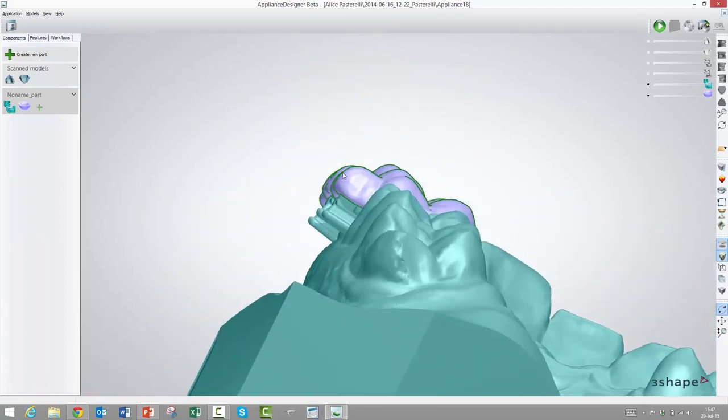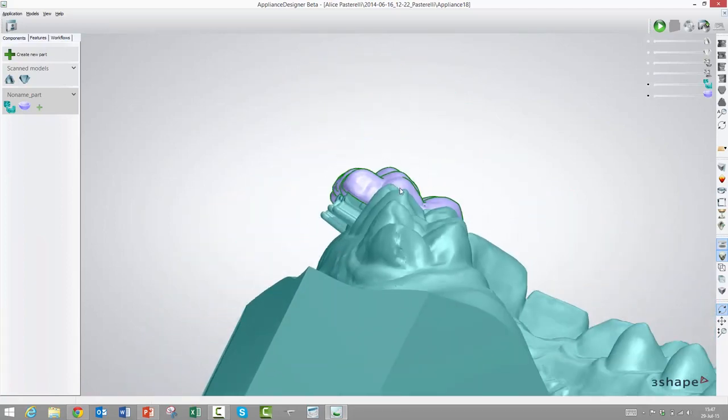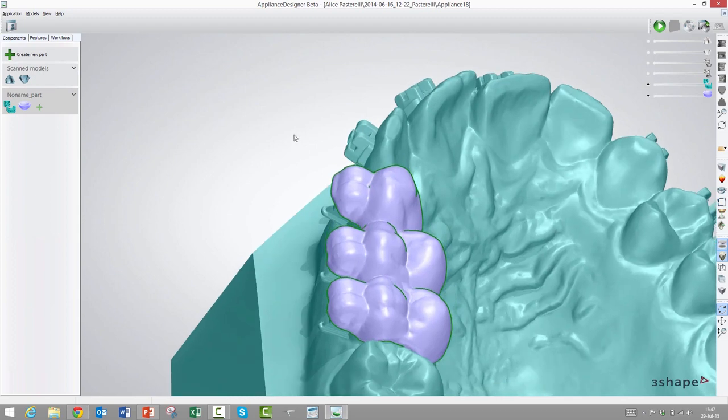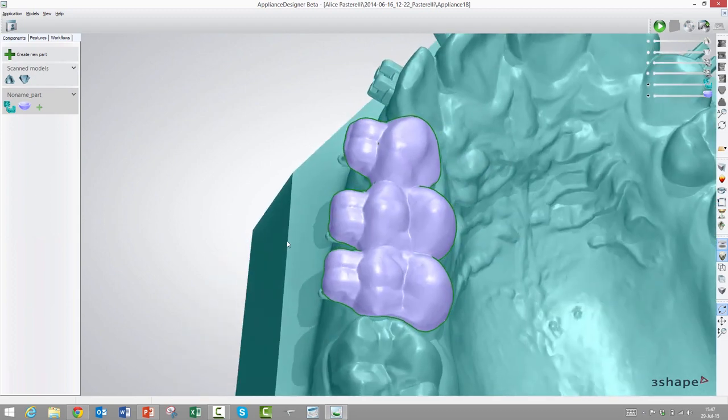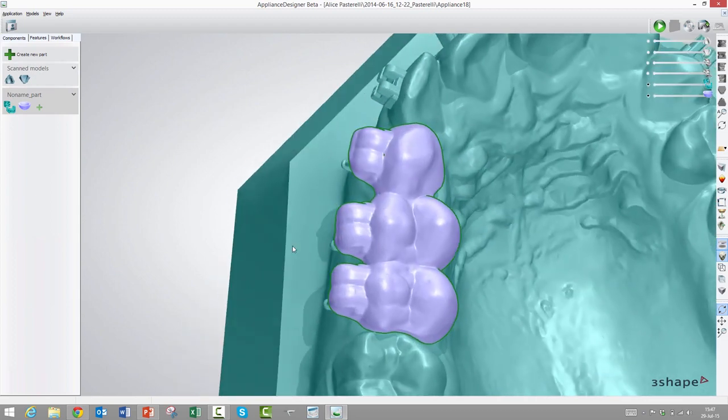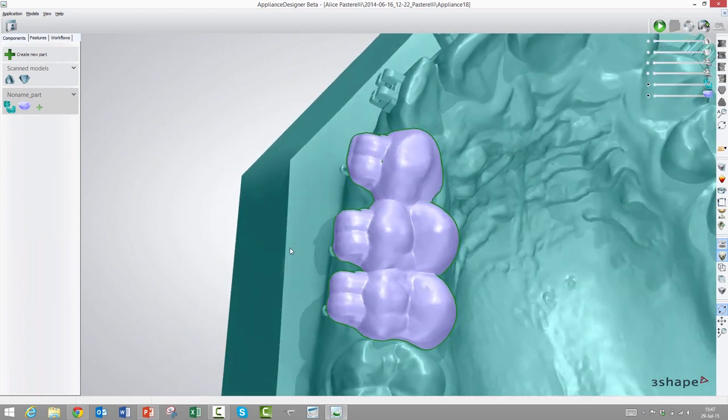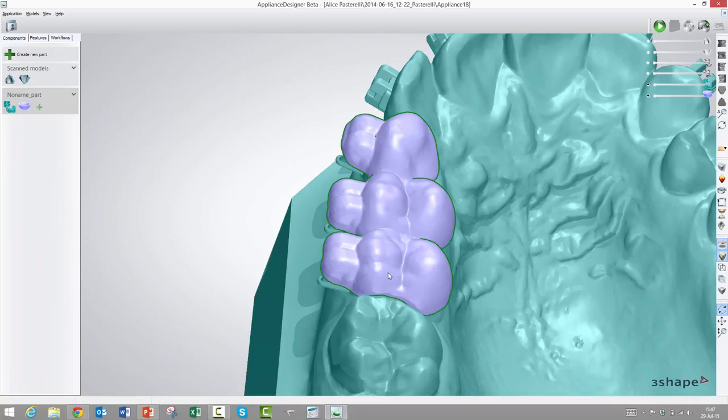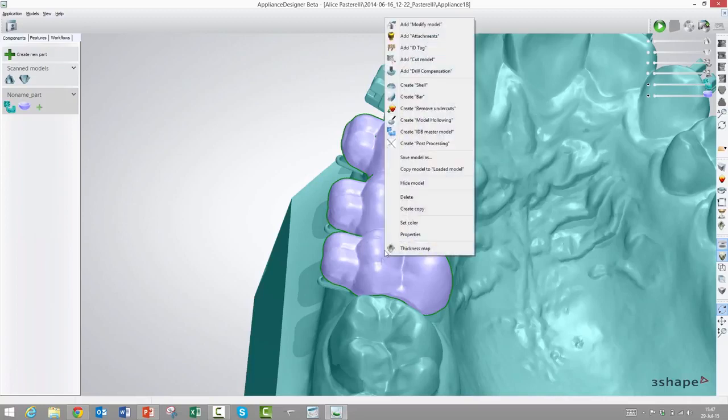We have the possibilities to decide how thick they should be. The default setting is one millimeter, but we could have made it thicker if we thought that was appropriate for the material. If it is rubber, then you need some thickness for it. So maybe a millimeter and a half or two millimeters, but again it depends on the material, and in our software you have the possibility to adjust it.